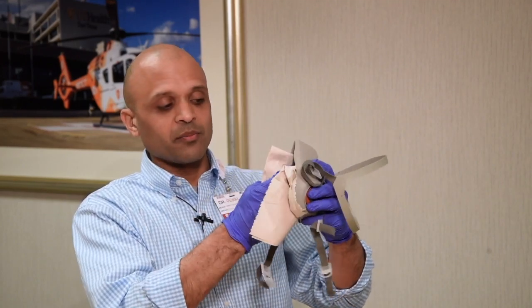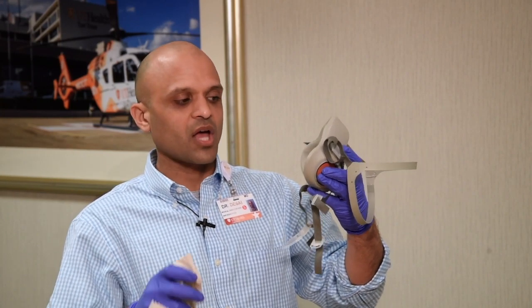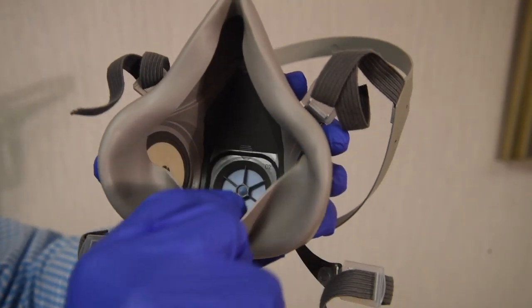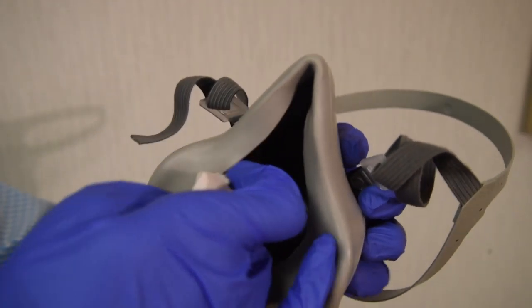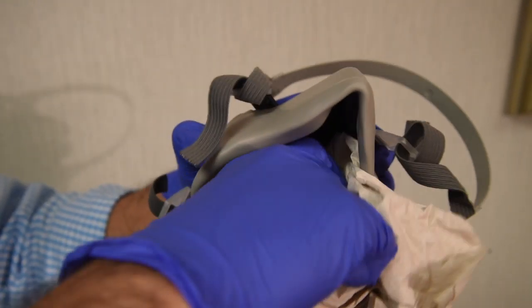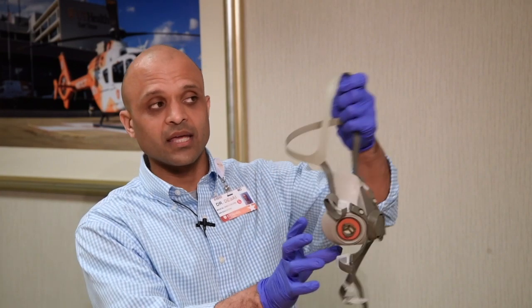It's probably a good idea to do this on a periodic basis even if you've been very careful, because you're breathing in the mask — it gets sweaty and hot. Make sure you pull the silicone edge out and wipe behind it, getting all the way into the corners so you're disinfecting this thing all the way inside out. Then you want to set it down or hang it on a completely disinfected surface and allow it to air dry.